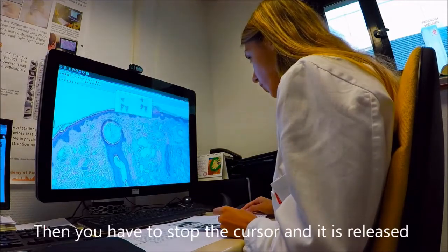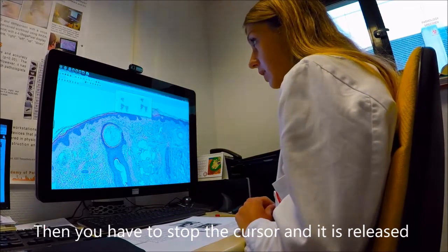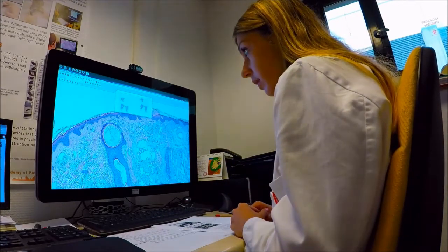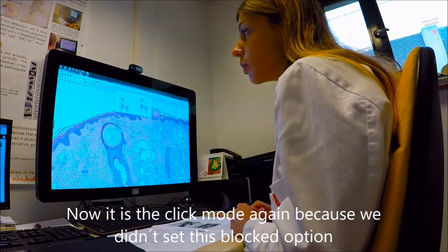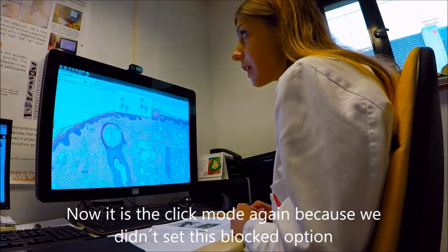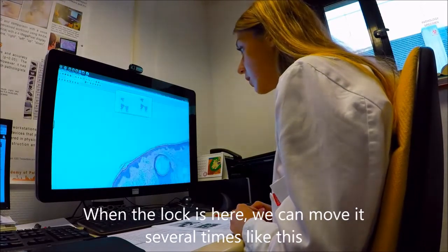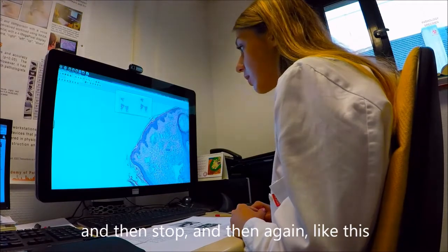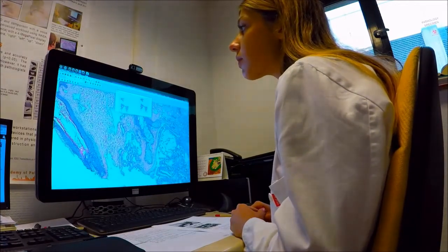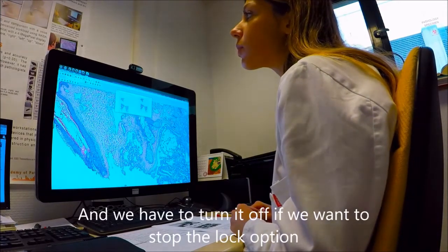Then you have to stop the cursor and then it is released. Now it is the click mode again, because we didn't set the lock option. When we do, we can move it several times like this, and then stop, and then again like this. And we have to turn it off if we want to stop the lock option.